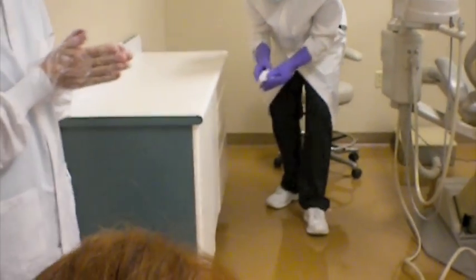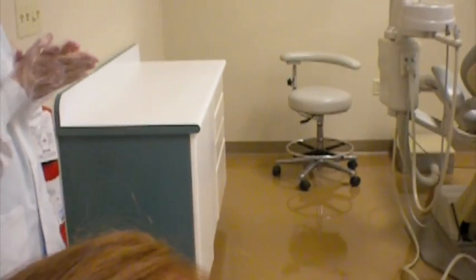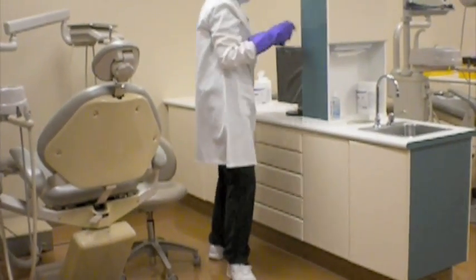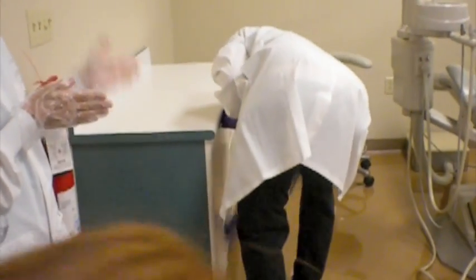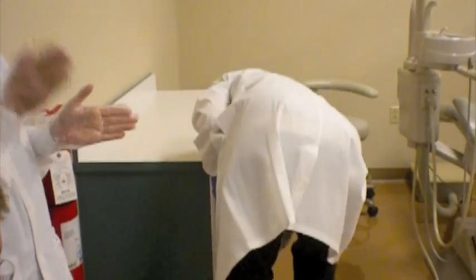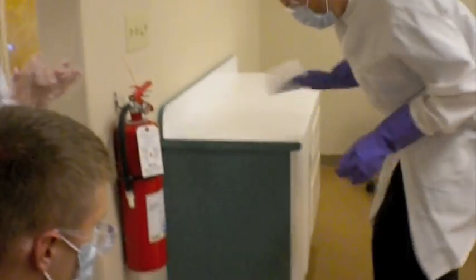The tops are extensive, correct? There's quite a bit of surface on the top areas. The bases are not as extensive as the tops, but when you're going through this, you have to remember, again, long sweeping strokes. See how he's going from top to bottom. He's not just getting 3/4 of it, he's doing all of it, and then including the end cap.